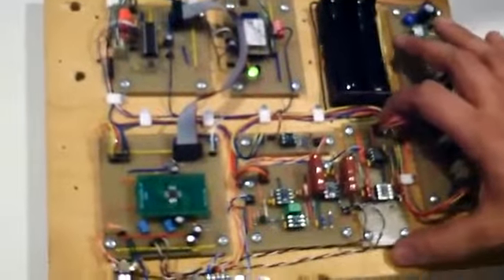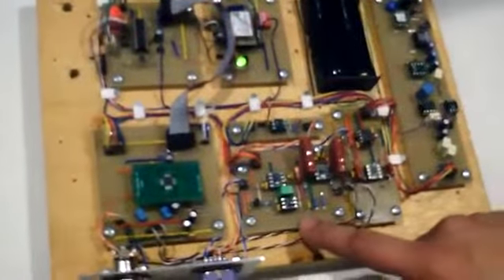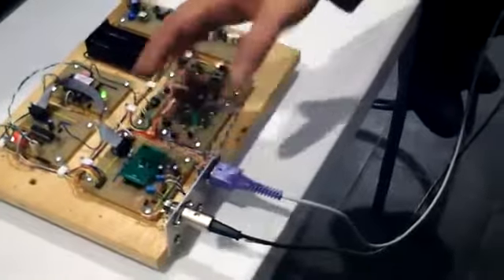This is the ECG amplifier here. It takes the incoming ECG signals and does some basic amplification and basic processing. This here is a transimpedance stage and a filter for the SpO2 signal, because we're getting very small current signals, and we actually need a sample voltage signal. So it converts those current signals into voltage signals and sends both the ECG amplifier and the SpO2 amplifier outputs to this, which is a medical grade analog to digital converter.